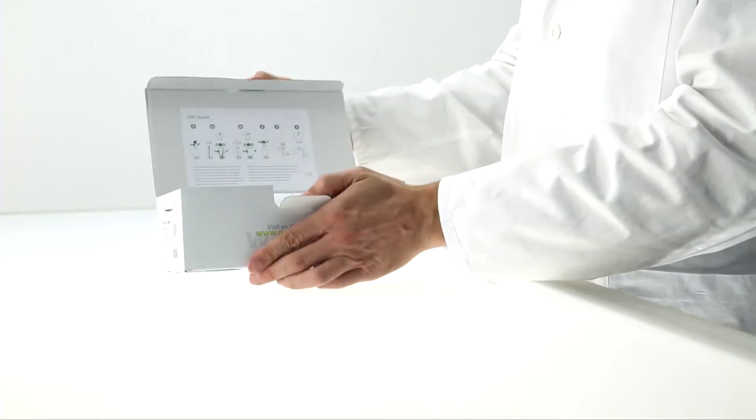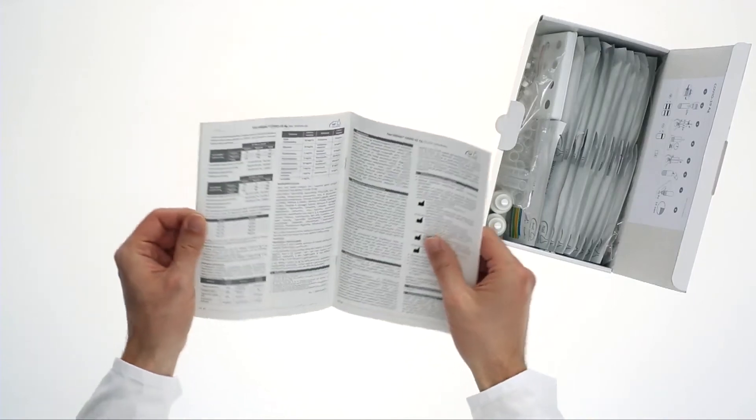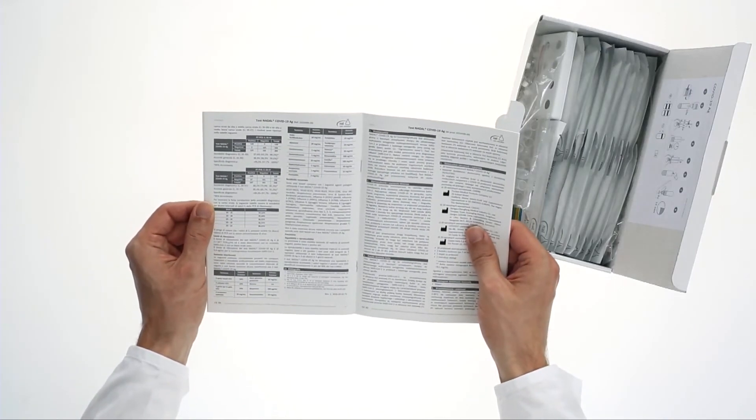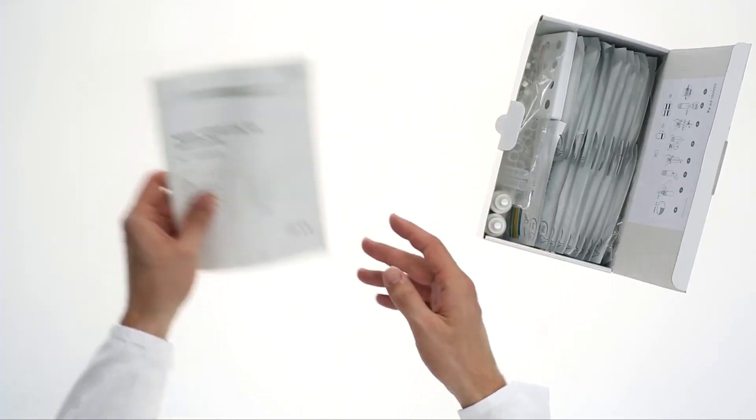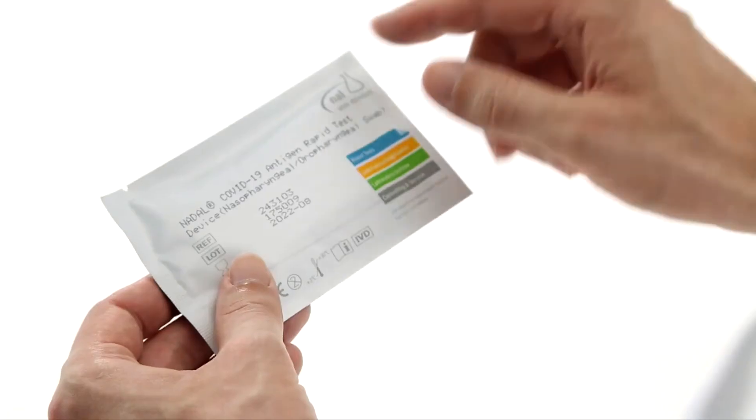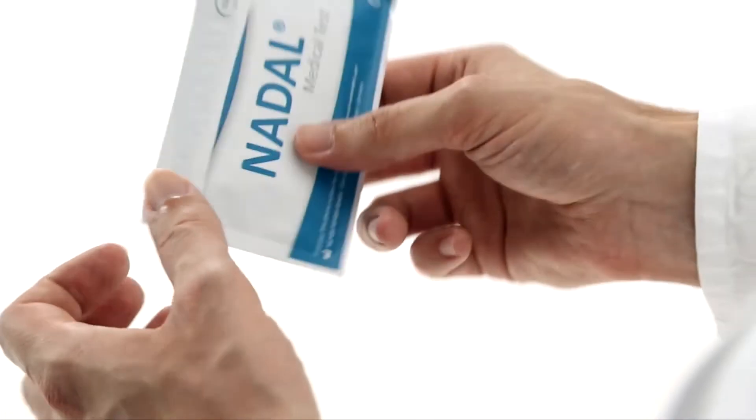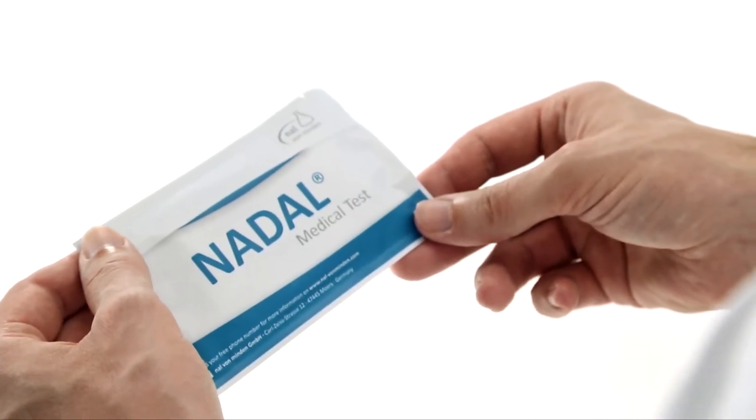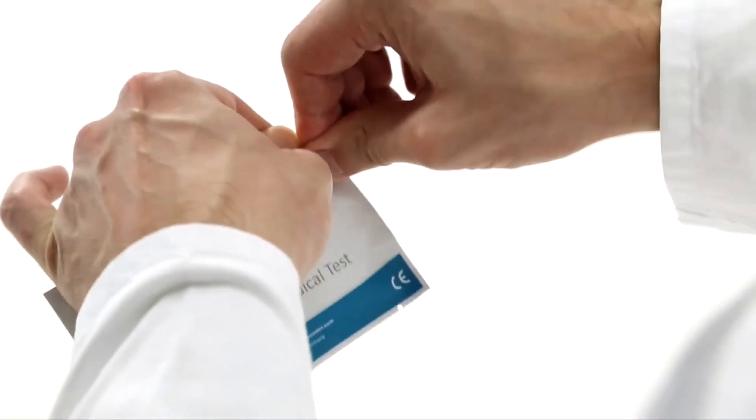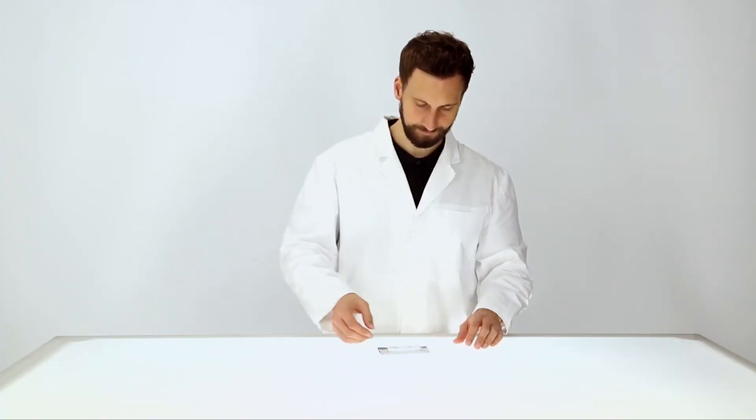All Nadal rapid tests are for professional use only. Start by reading the instructions carefully. Do not use tests with damaged pouches or beyond the stated expiry date. Use the test immediately after removing it from its pouch and don't touch the result field.